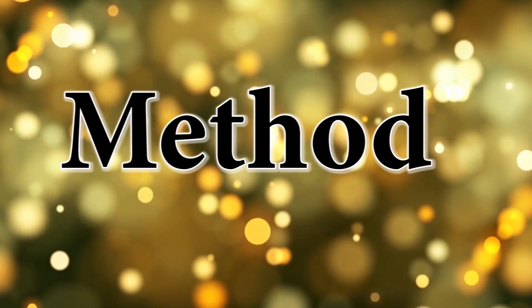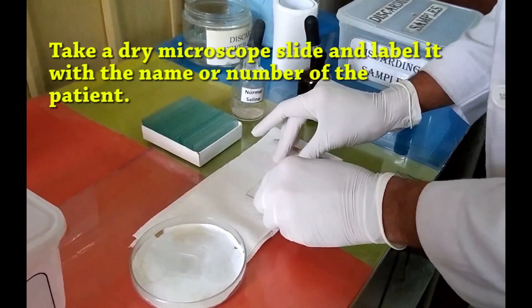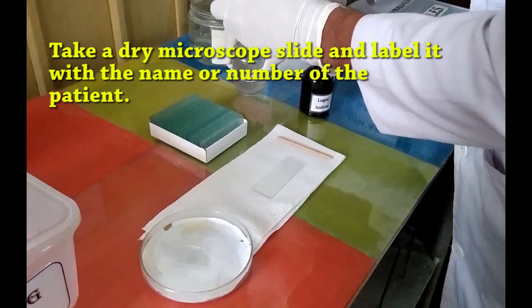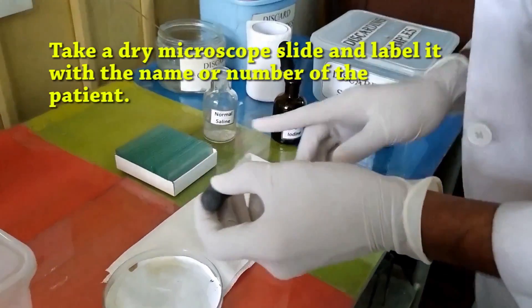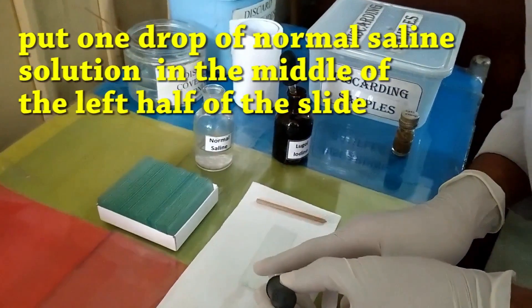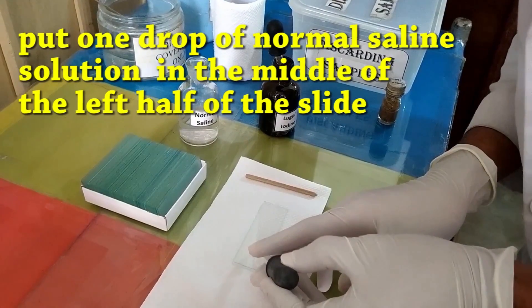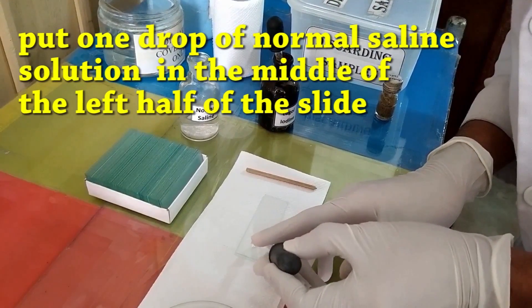Method: First you have to clean your microscope slide and label it with the name or number of the patient. Put one drop of sodium chloride solution — that means normal saline — in the middle of the left half of the slide.